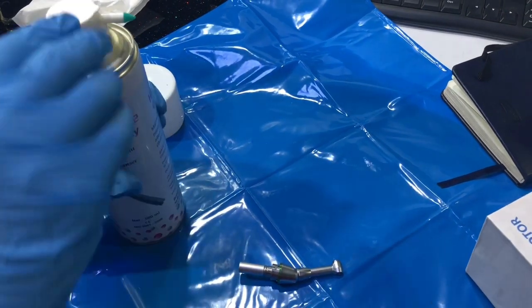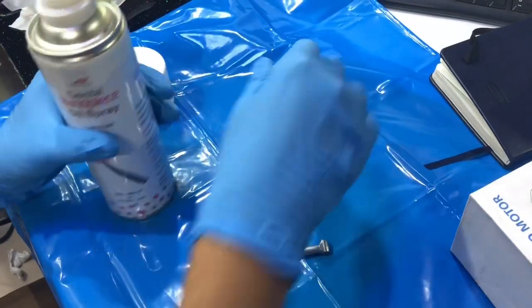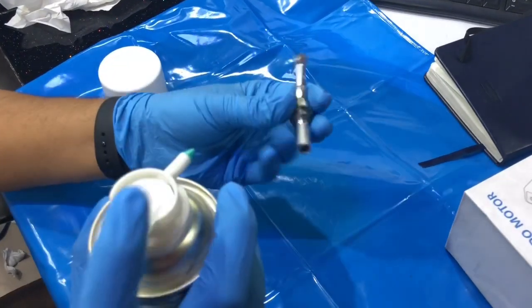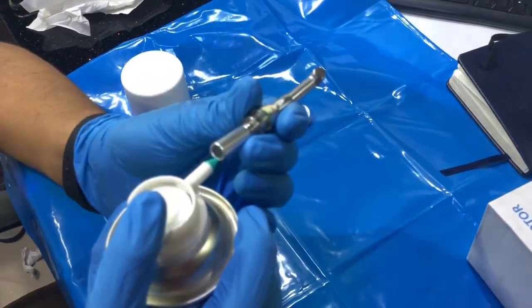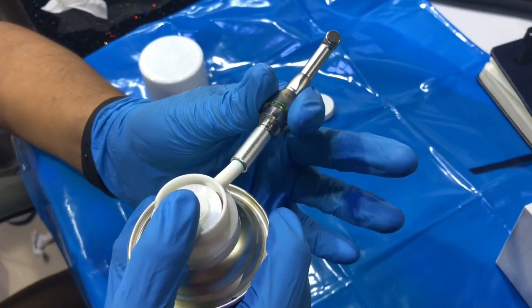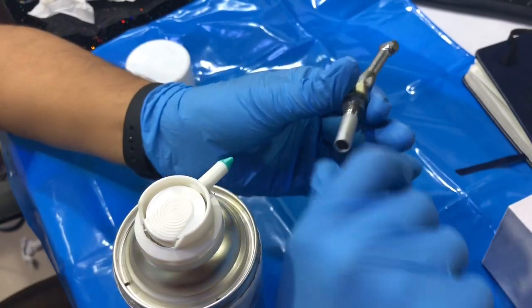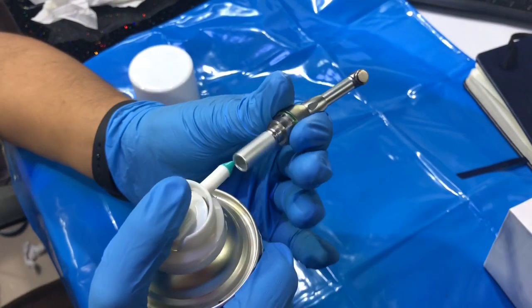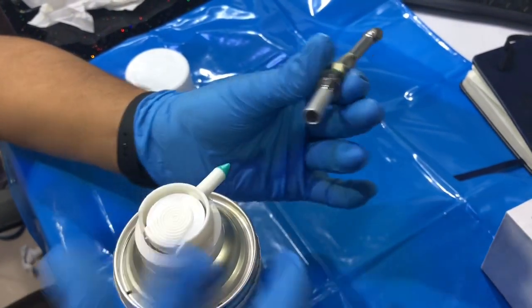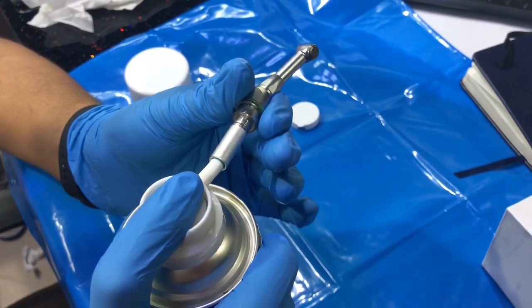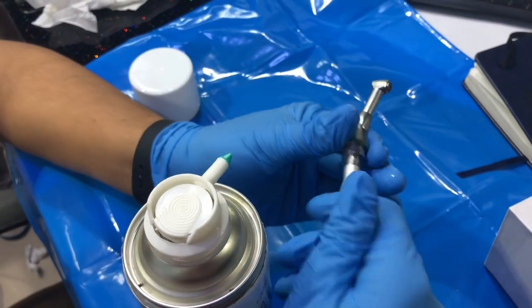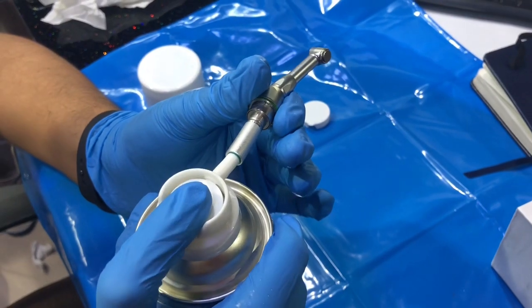Then just spray it. Move it a little bit, spray it again, move it, spray it again, move it and spray it. Just turn it.